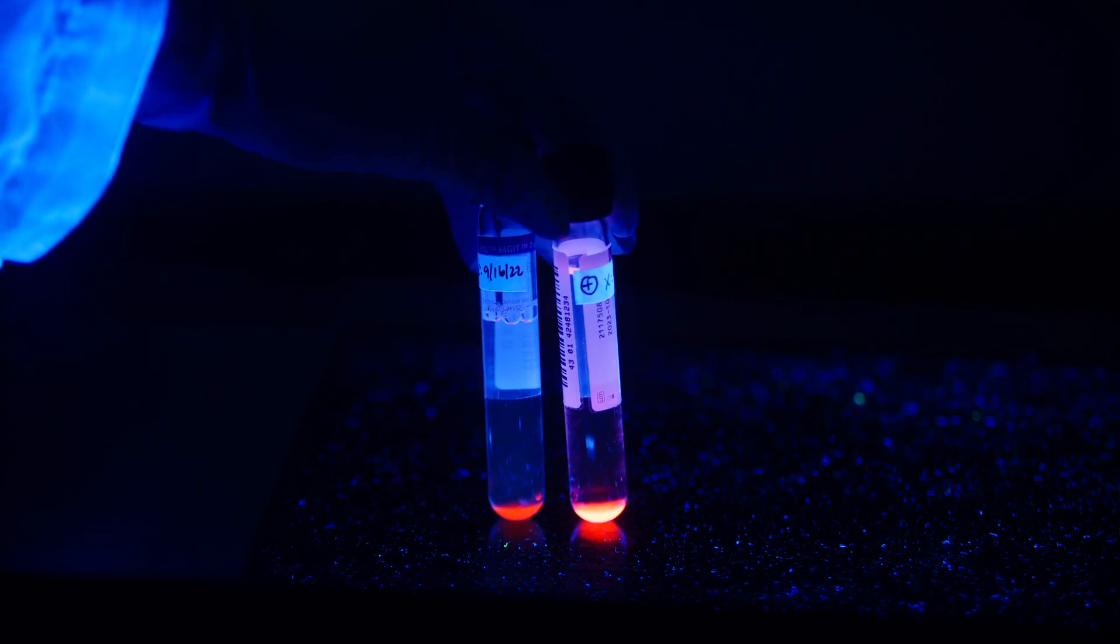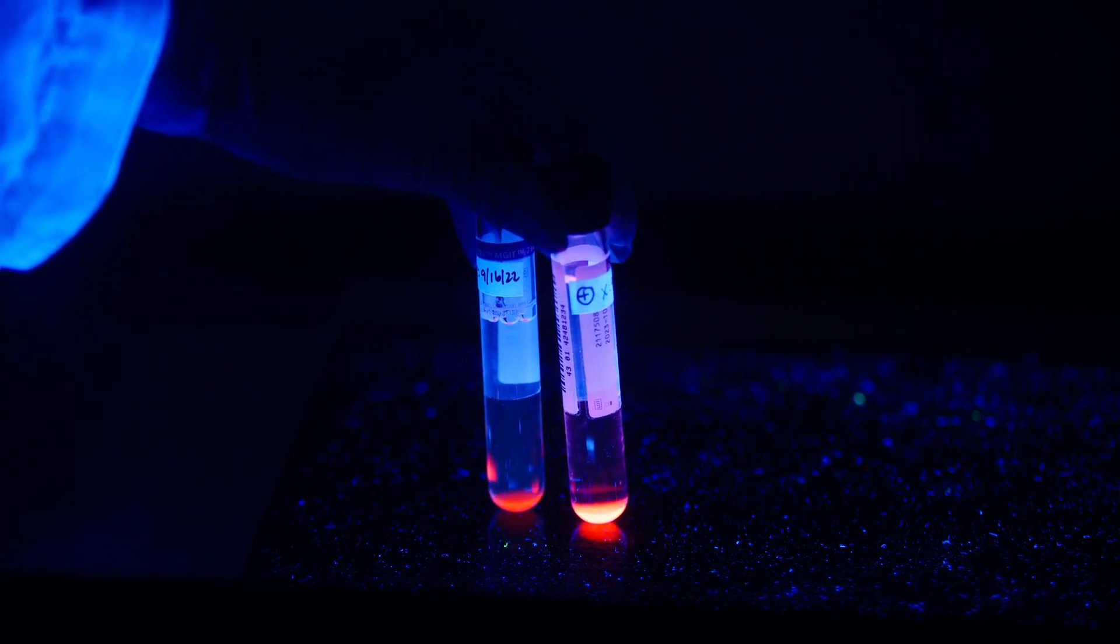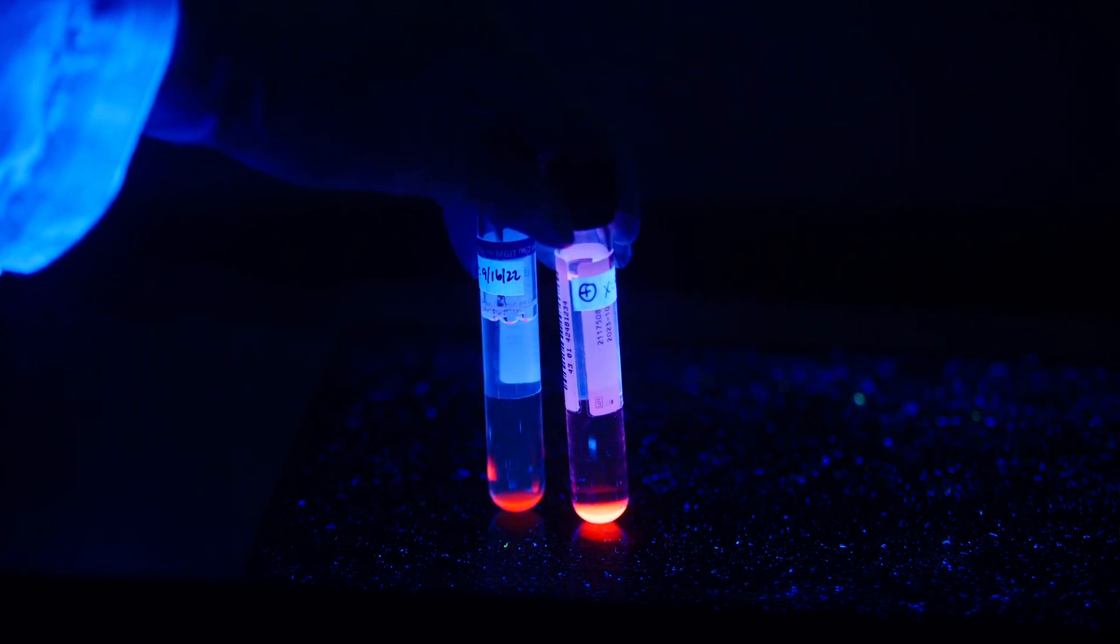Another test swirls the sample into a tube filled with a special broth. If tuberculosis is there, it will eventually declare itself with an eerie glow as it digests the oxygen in the tube.